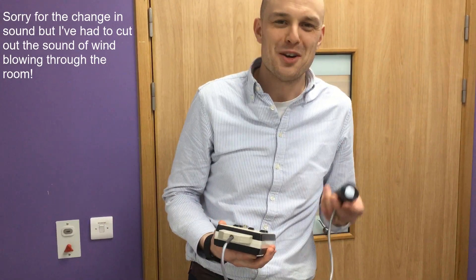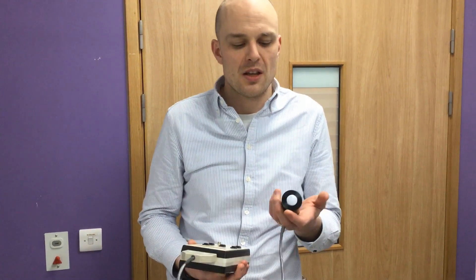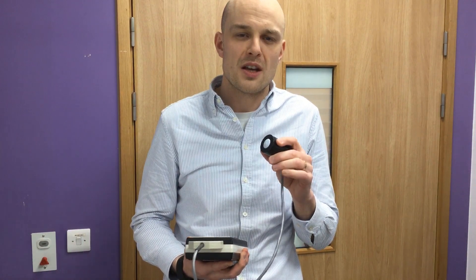If you're going to use a broadband radiometer, it's very important to have it calibrated appropriately. As it's a broadband system, it can't tell which wavelengths of light are entering the detector, and it doesn't have a flat response — it's not equally responsive to all wavelengths. It's very important that you have an optical calibration. If you buy the system brand new, it will often come with an electrical calibration but not necessarily an optical calibration.